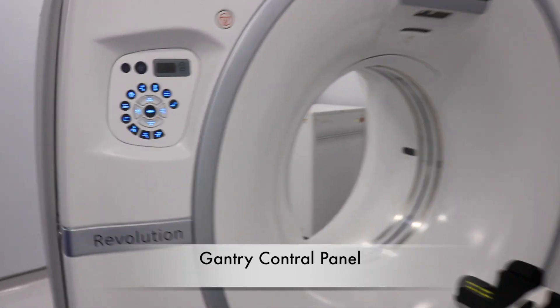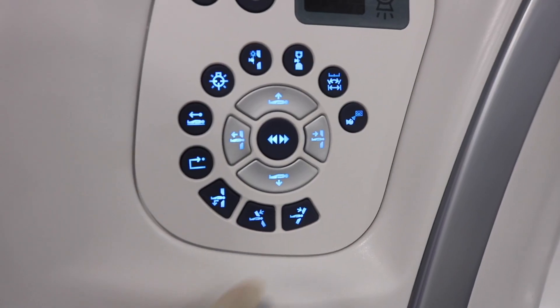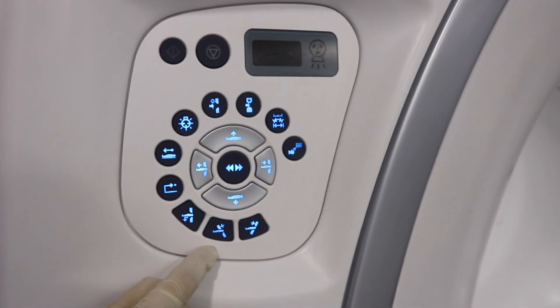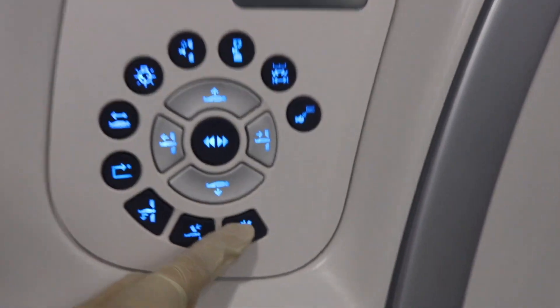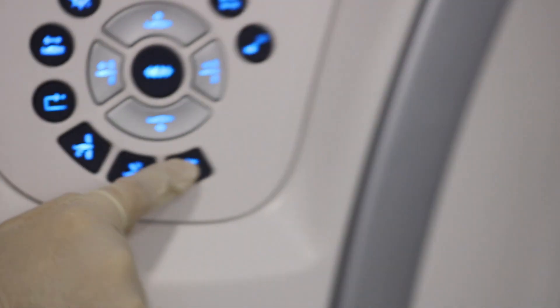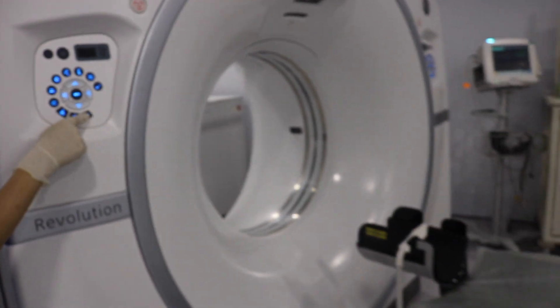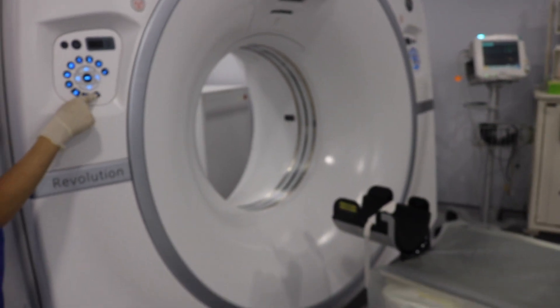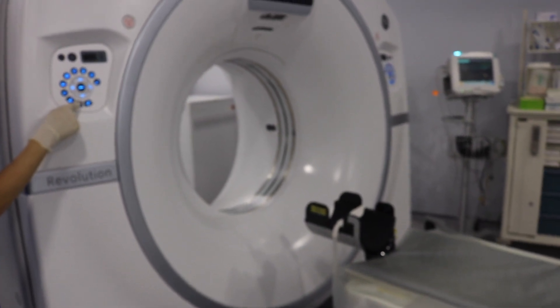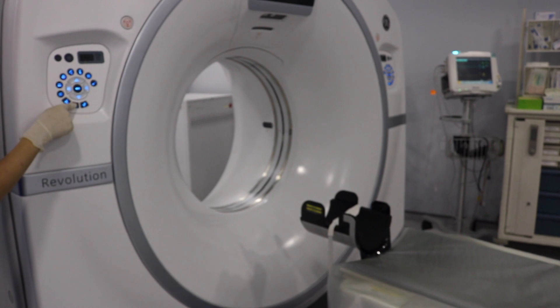Here is the gantry control panel. These two buttons are for gantry tilting. If you press this button, the gantry tilts inward, as you can see. And if you press the other button, the gantry tilts outward.